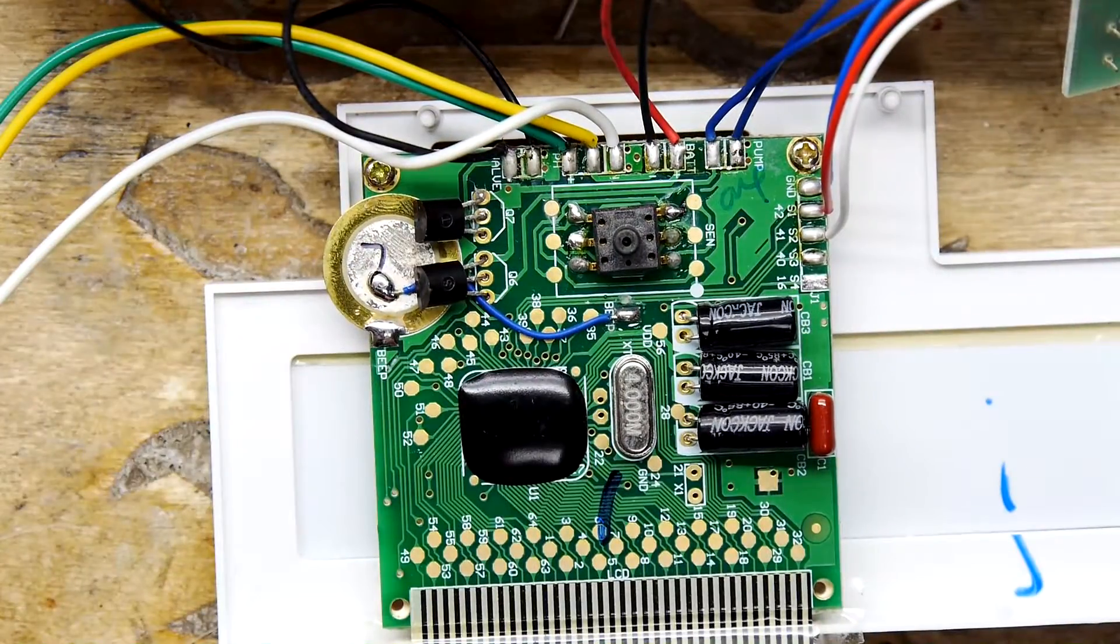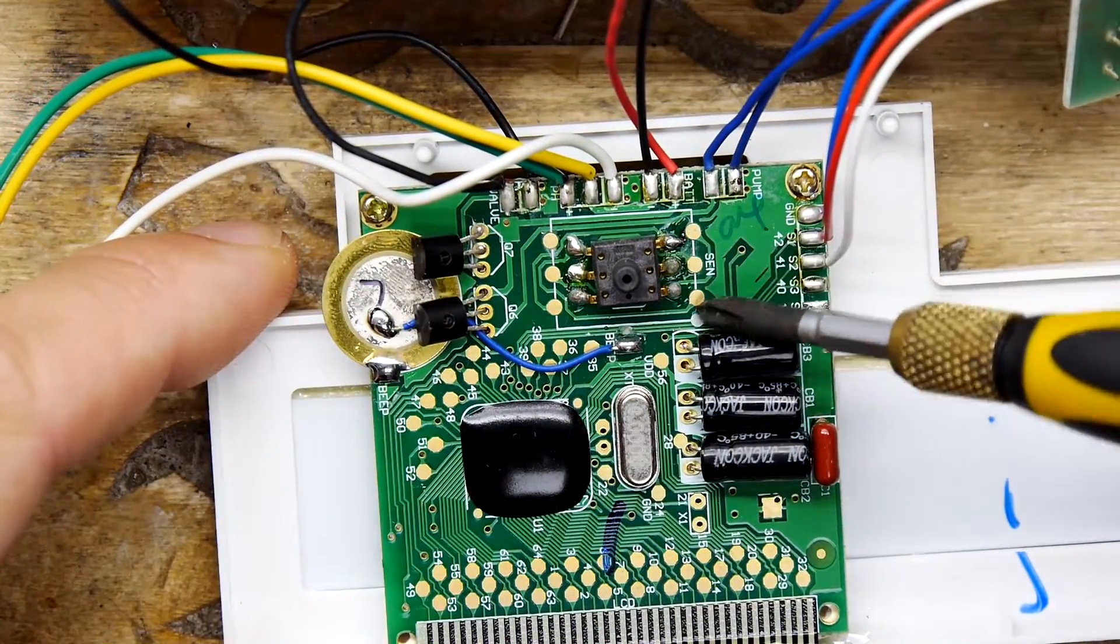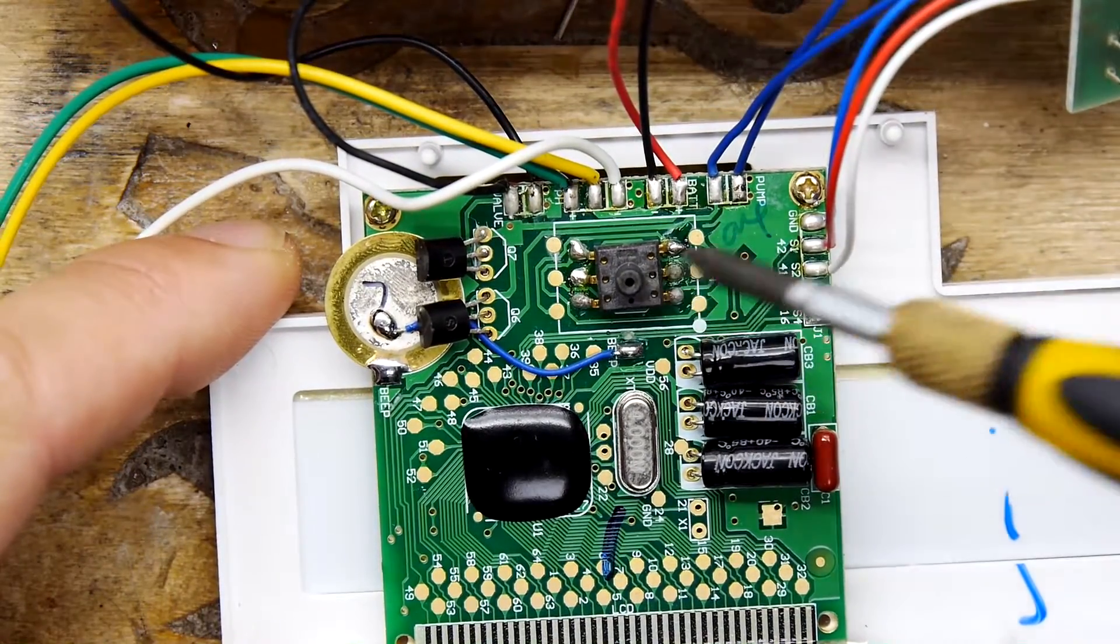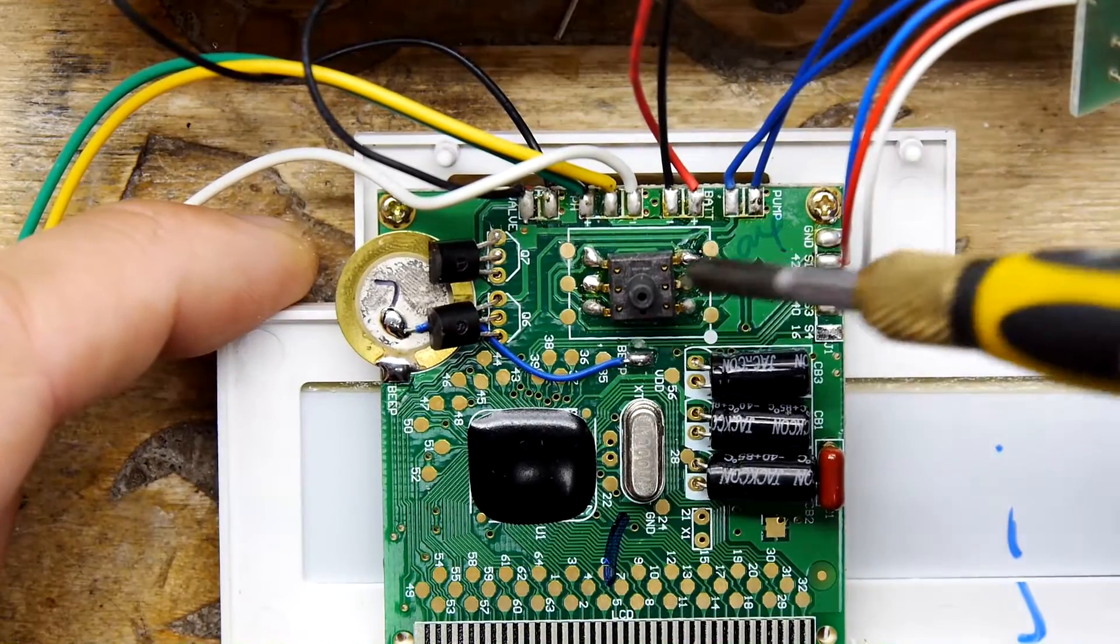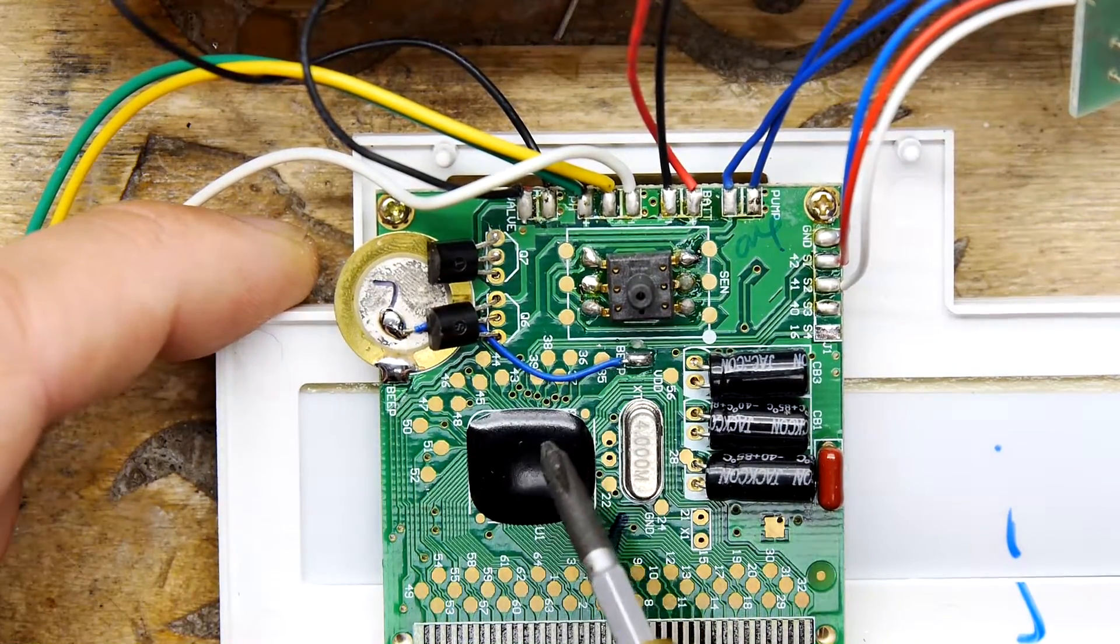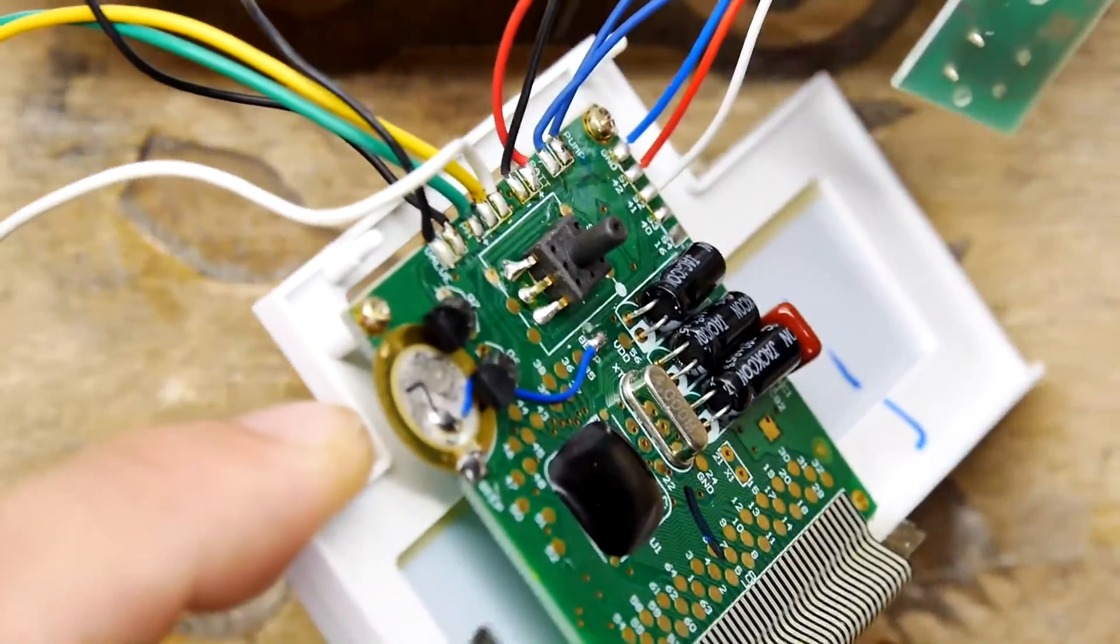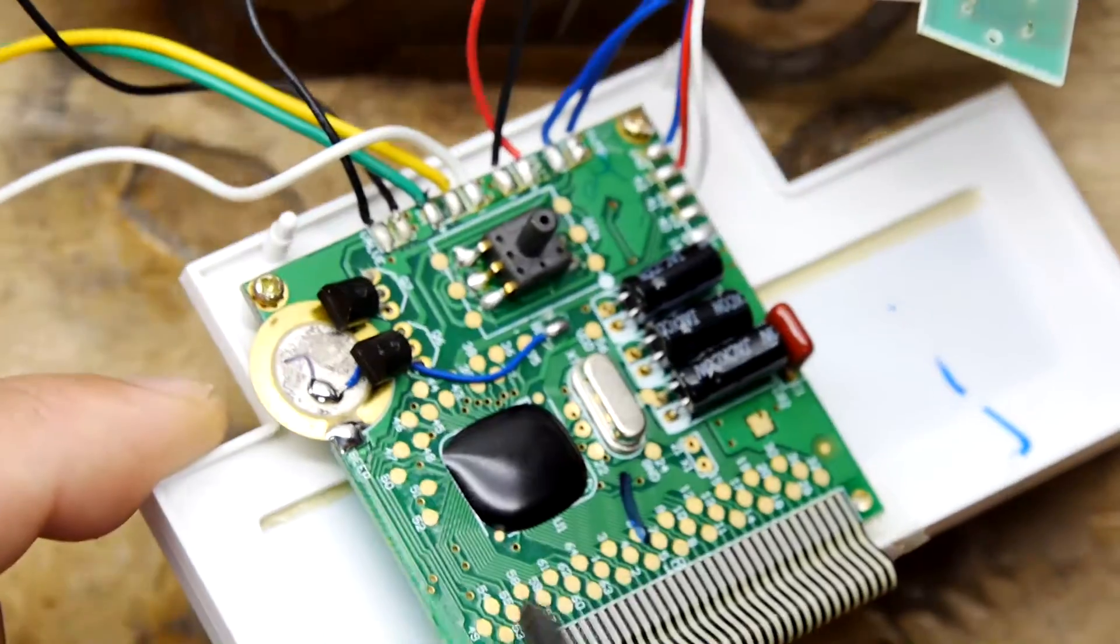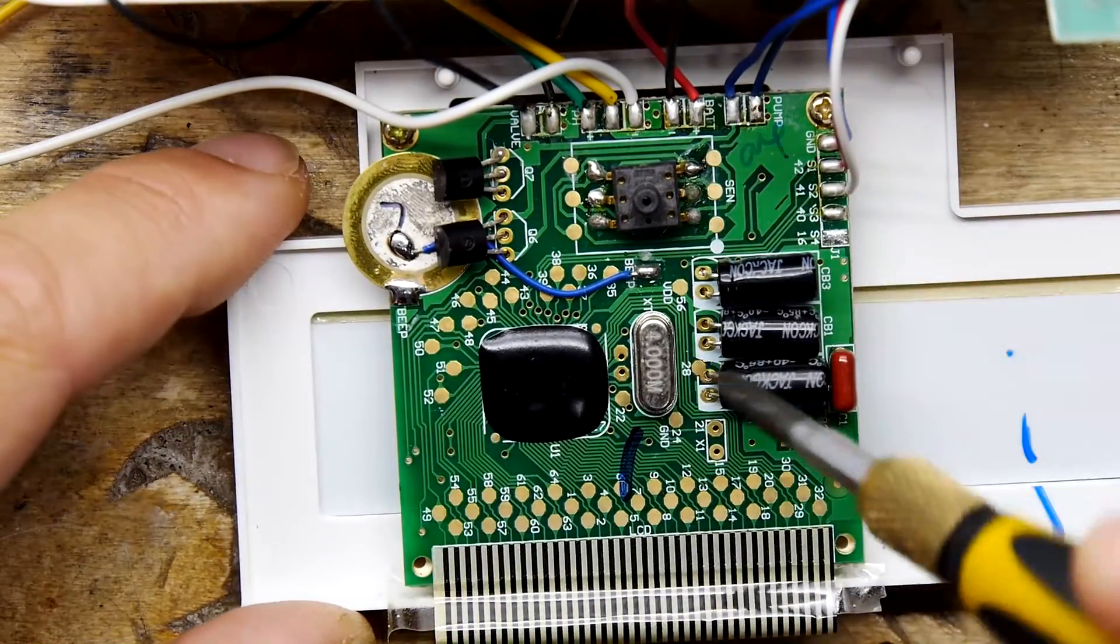And you can see here, the board is dual footprinted. So there's clearly maybe a different footprint there or these are test points for this thing, but fun as hell. Generally, the ones I've played with are analog devices. So they'll be coming to here, which will be basically a microcontroller under this blob, looking at the PCB underneath there, nothing there, just a few passives behind on the back of that PCB. All the main gubbins are here.